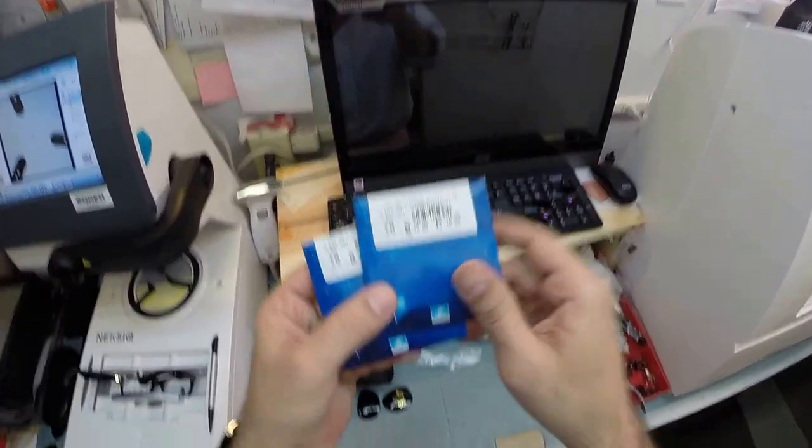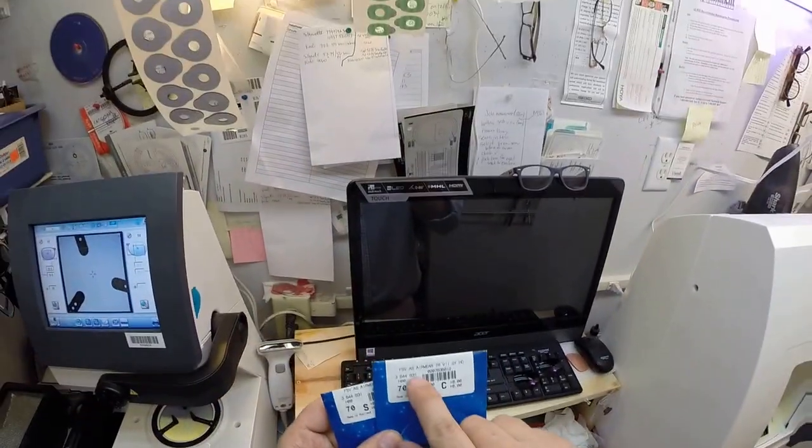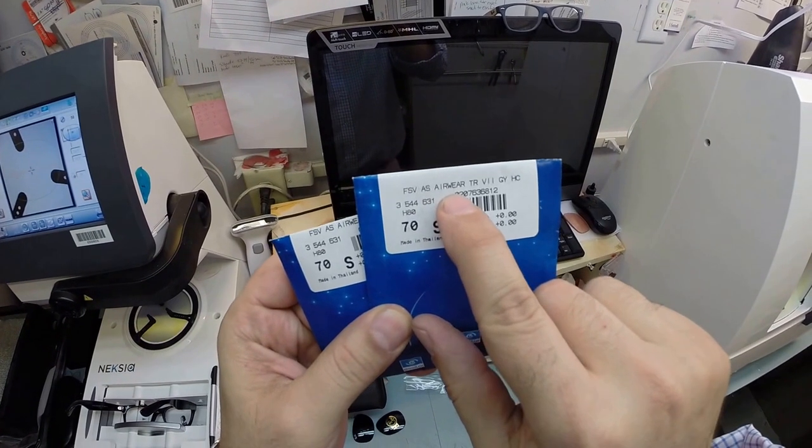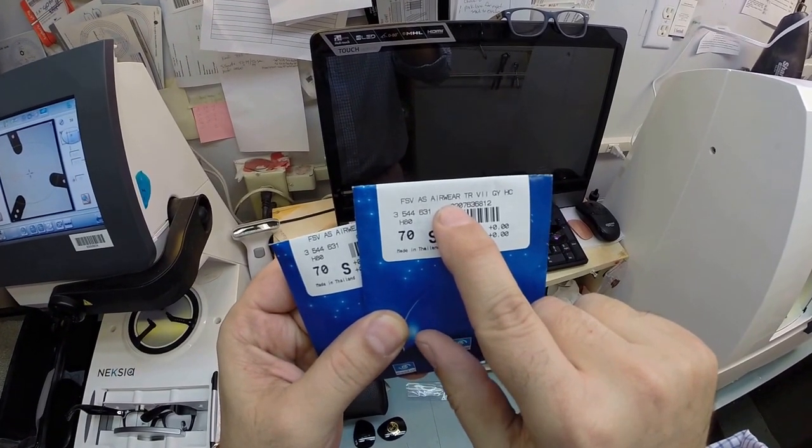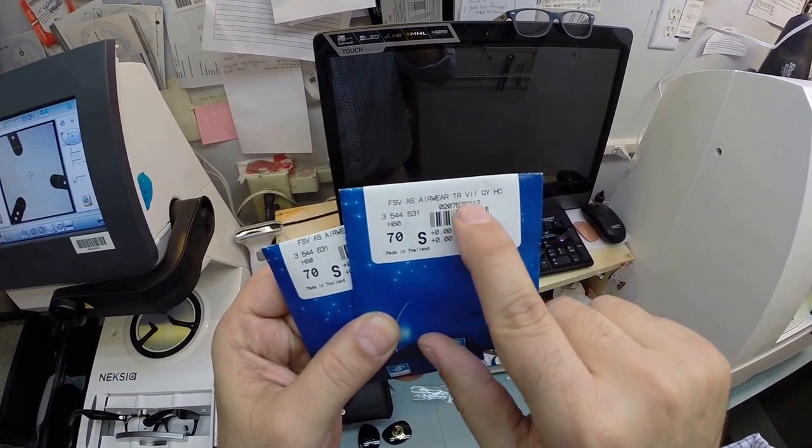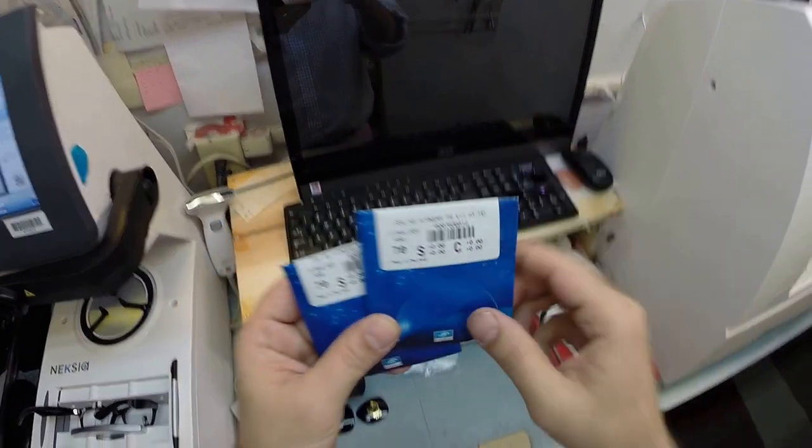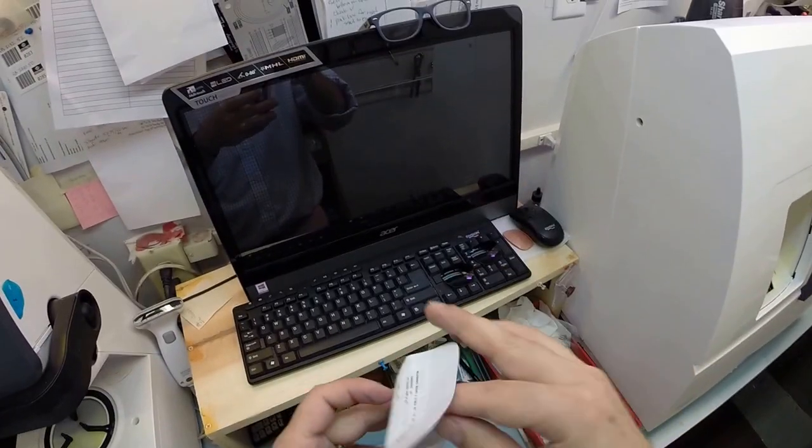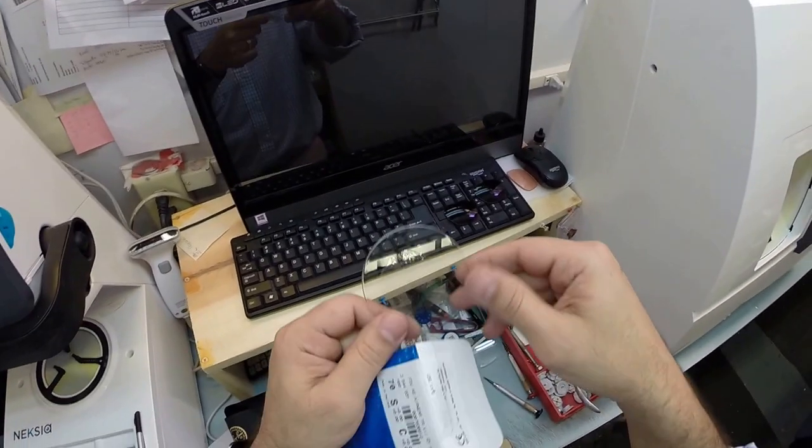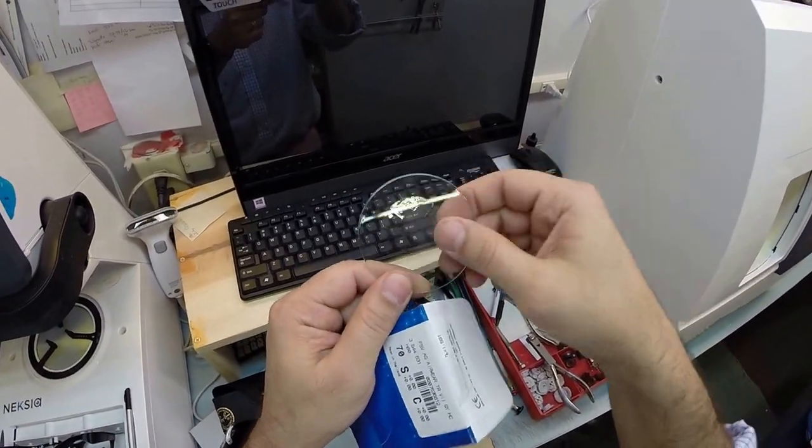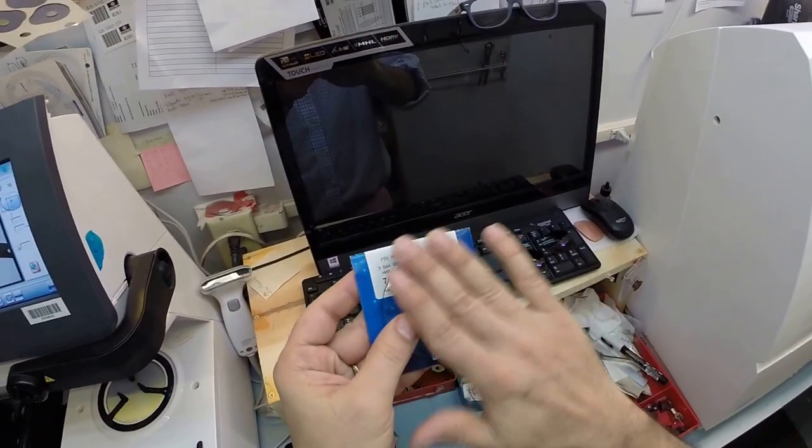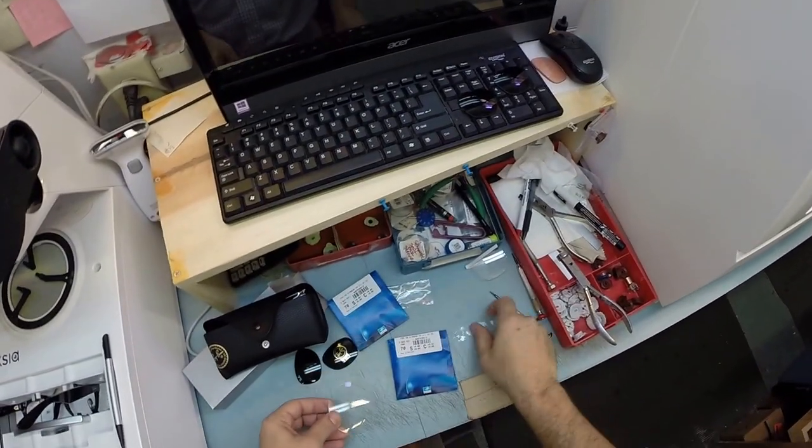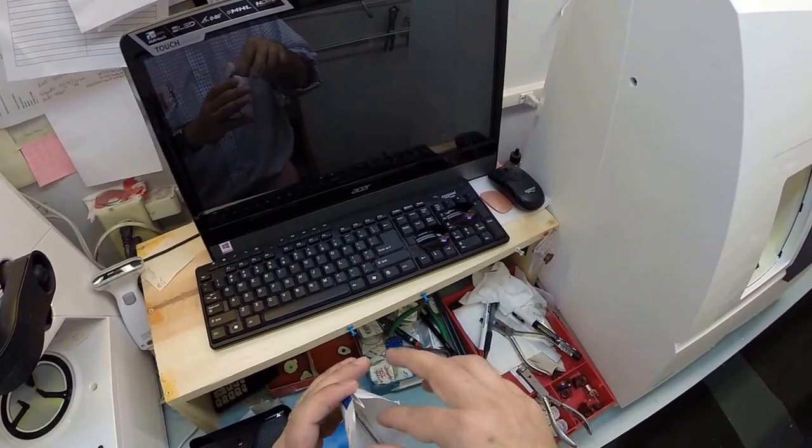Now these are your lenses. They are Essilor brand Aspheric Airware. Airware is what Essilor calls the polycarbonate lenses. These are Transition 7 gray lenses. I'm going to take these out of the protective sleeves that they come in. Of course it comes with a little laminate on the front of the lens to protect the lens from anything that could rub against the front surface while it's shipping.